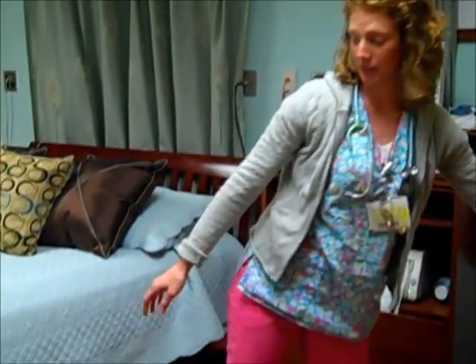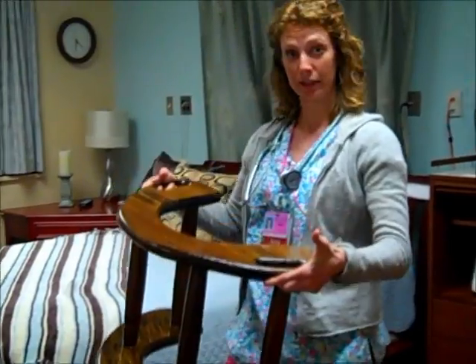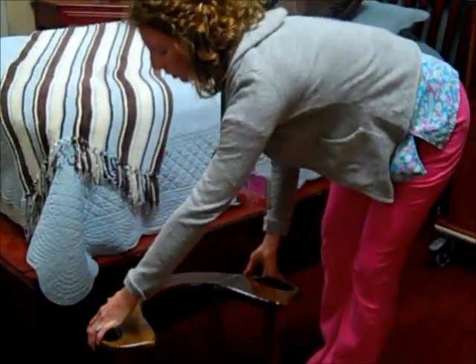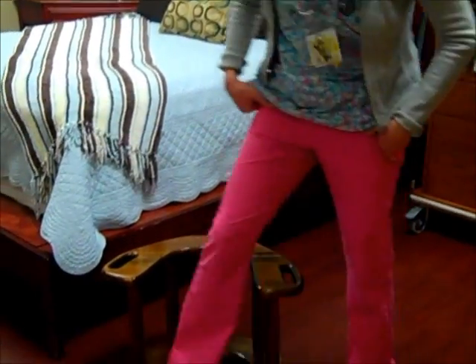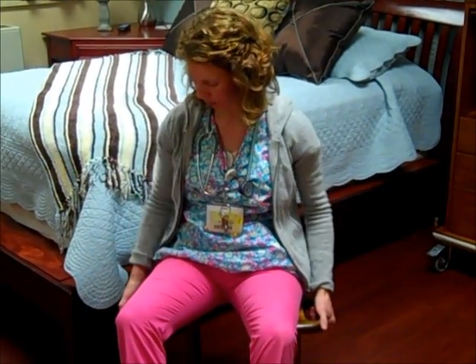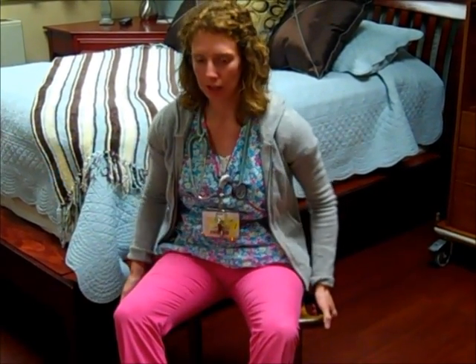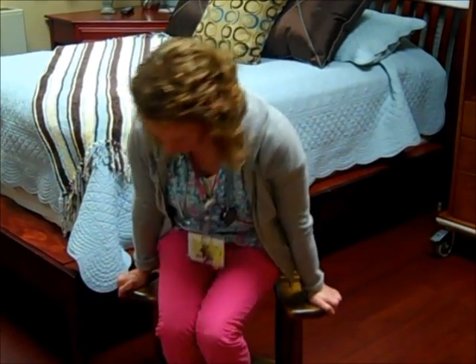Something else you could see is this item called the birthing stool, and the patient can actually deliver on the stool. So what that would look like is we'd spread out some linens on the floor, and the patient could be sitting like this, and they usually have their support person behind them, and they're able to use these handles here to kind of, when they're pushing, pull down and push through their perineal floor. So this is a popular option as well.